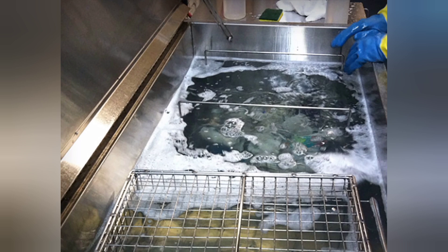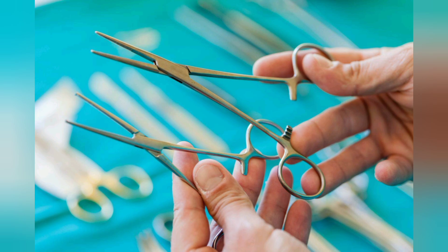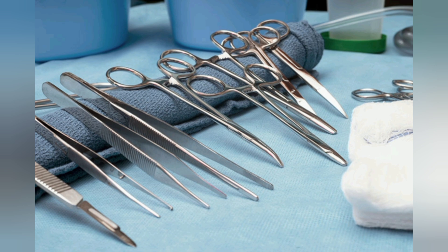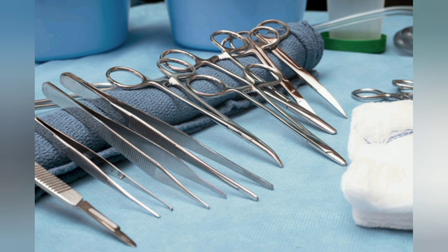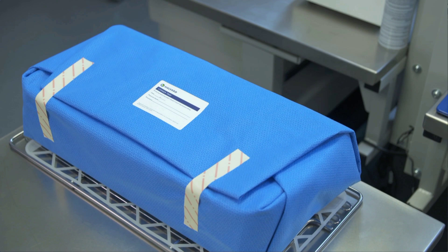Next is inspection. All instruments are inspected critically for cleanliness. Instruments such as scissors, chisels, and curettes are checked for sharpness. Hinged instruments such as clamps and forceps are inspected for stiffness and alignment of jaws and teeth. After inspection, these materials are packaged before sterilization.